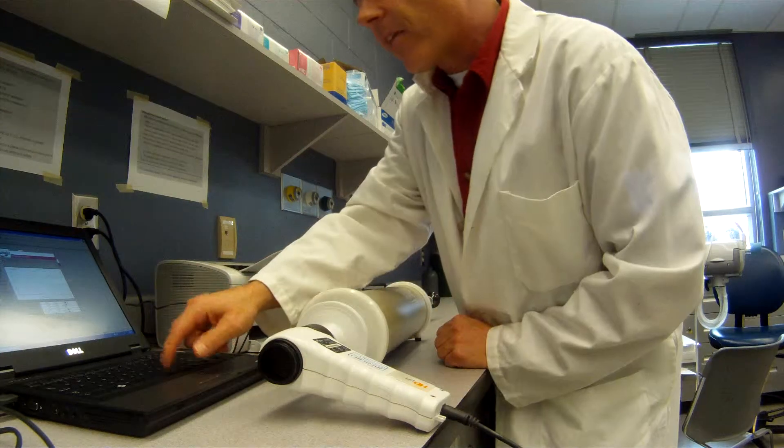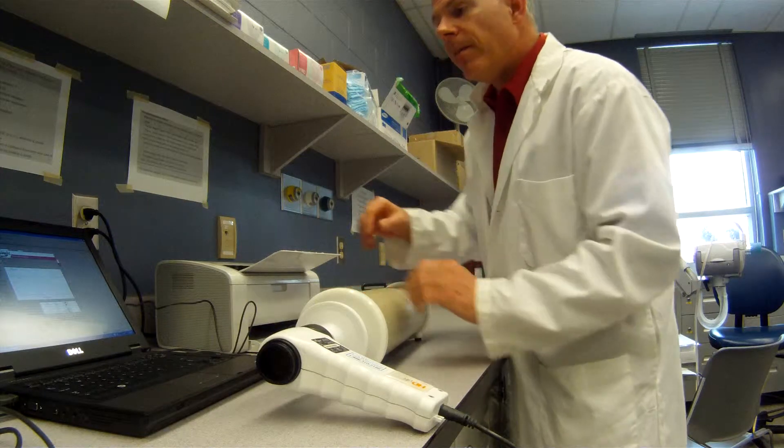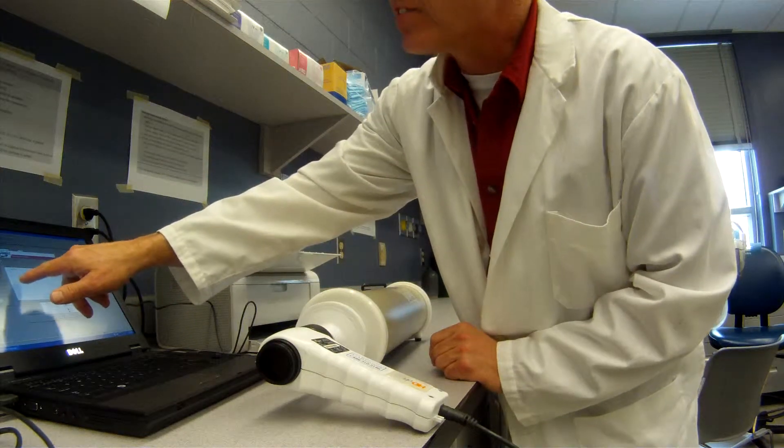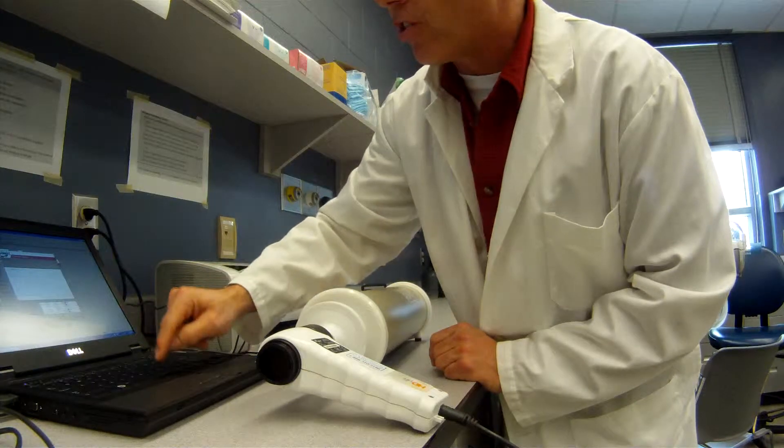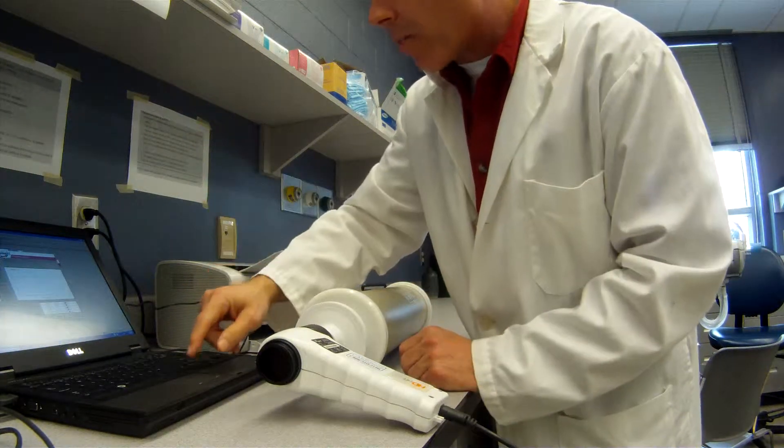And now we're going to do it for exhalation. This is our calibration procedure. So push it in as fast as you can or as fast to get the flow rate at about that dotted line. It said success. Great, we're calibrated. But we're not quite finished yet. So we hit continue.